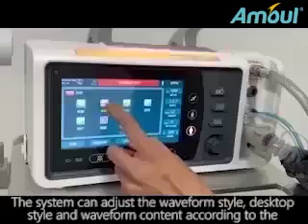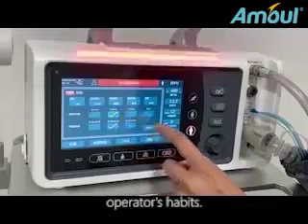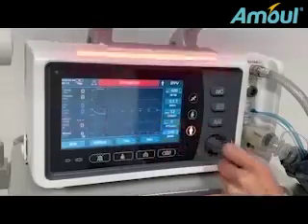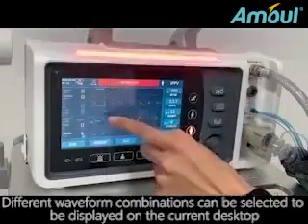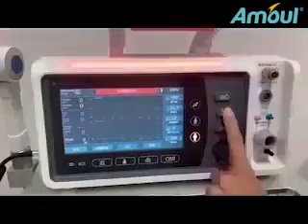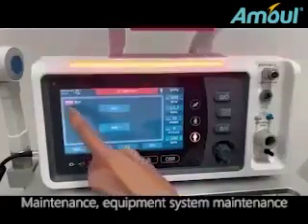The system can adjust the waveform style, desktop style, and waveform content according to the operator's habits. Different waveform combinations can be selected to be displayed on the current desktop. Time, main interface time setting. Maintenance, equipment system maintenance.